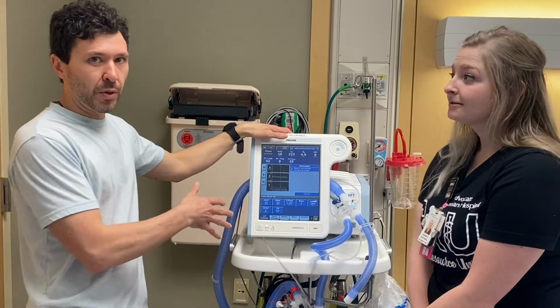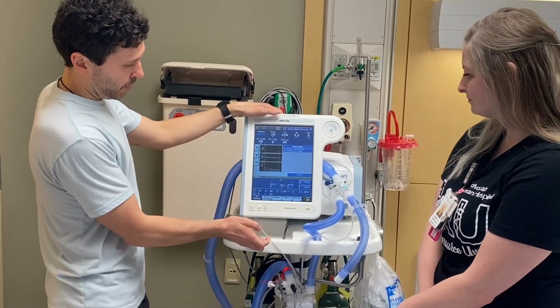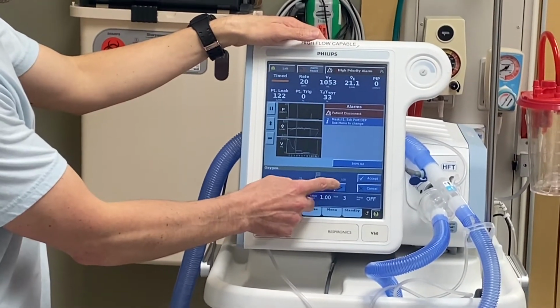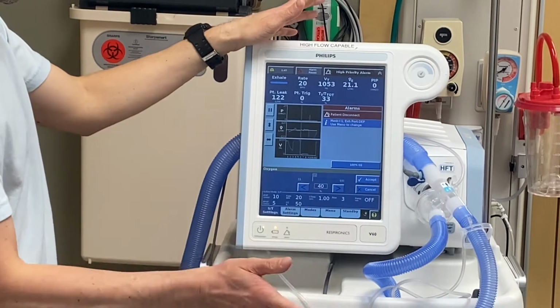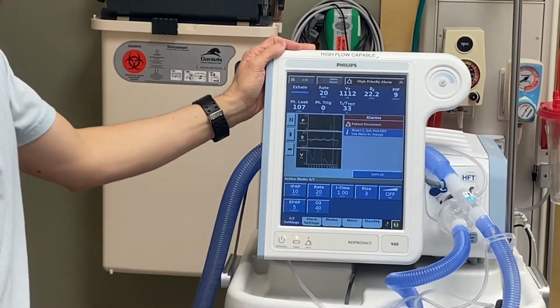Well, nursing or RT would be the FiO2. Yes. Very simple. You have your O2 button down here. Push your screen and tap your arrows till you get to your desired number. You can go either way, and then the coveted thing that every machine has, your accept button. So once you accept it, you've got your 40%.